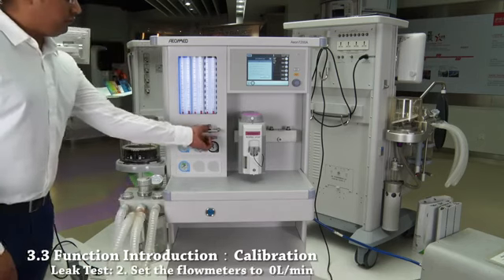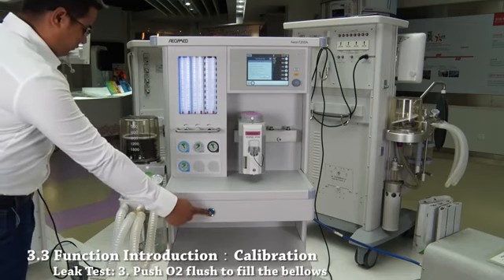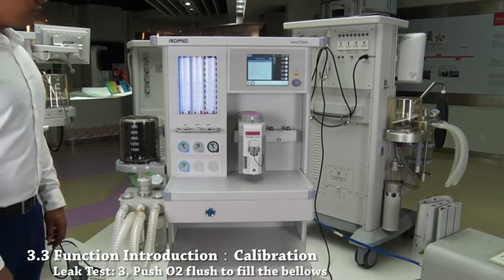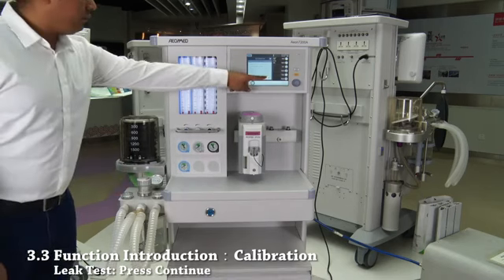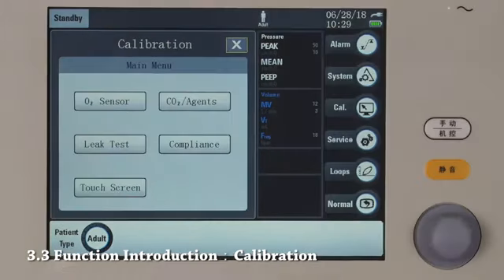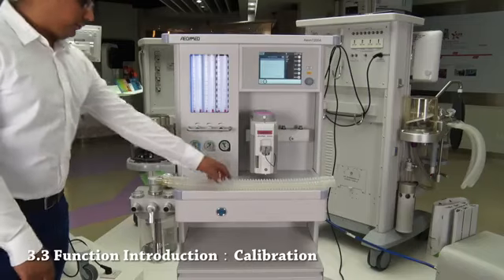Second, set all flow meters to 0 liters per minute. Third, push O2 flush button to fill the bellows. Press start. When leak test succeed is displayed, calibration is finished. Touch here for compliance test.